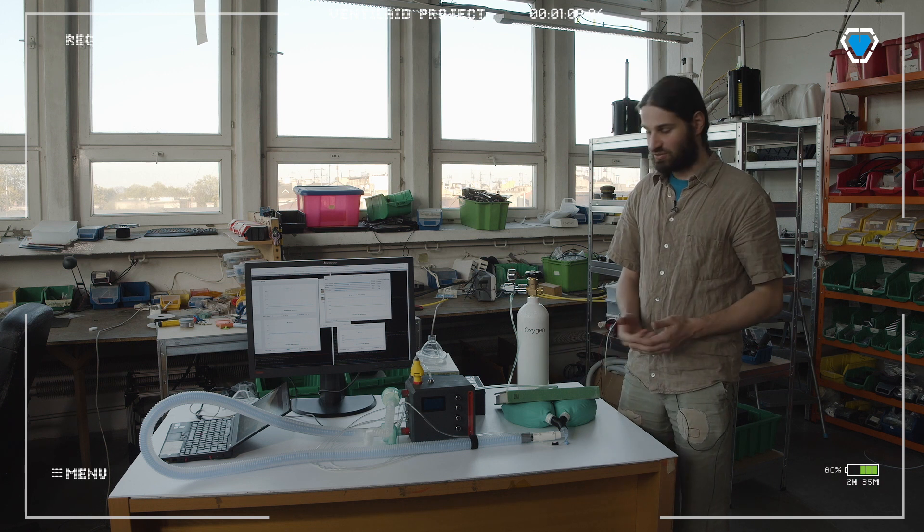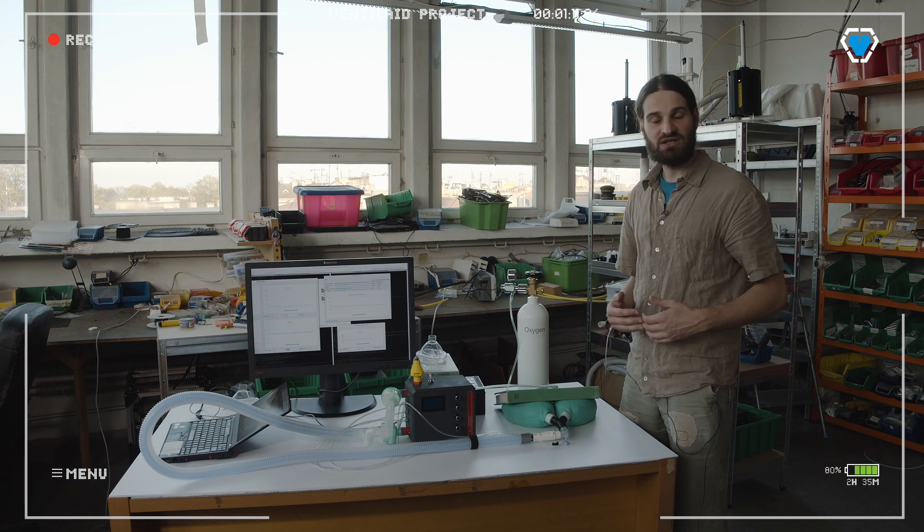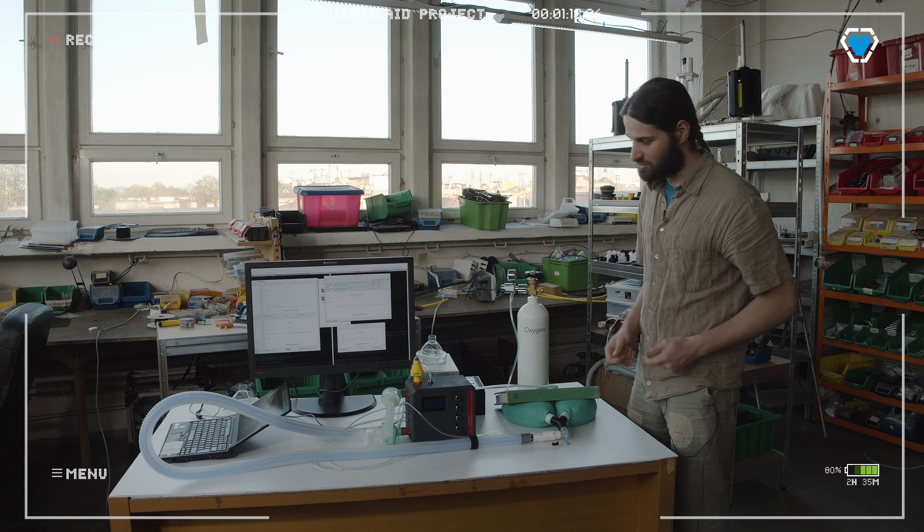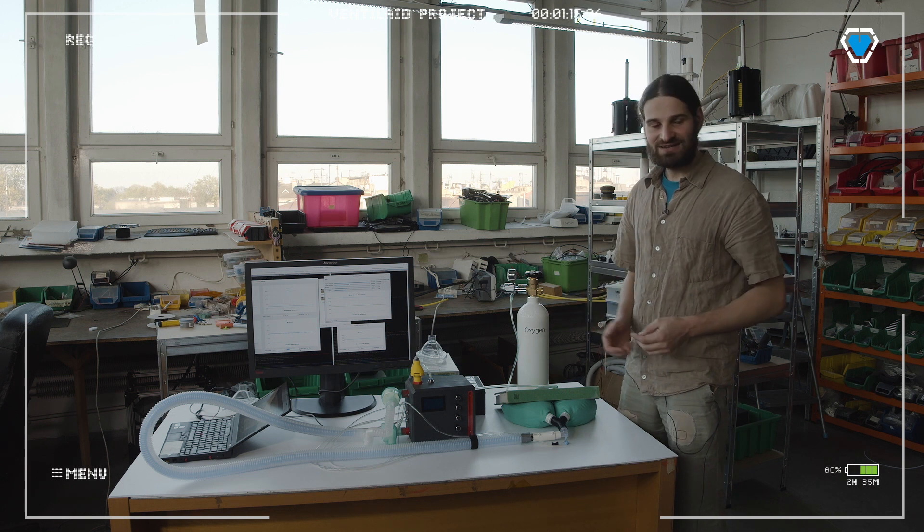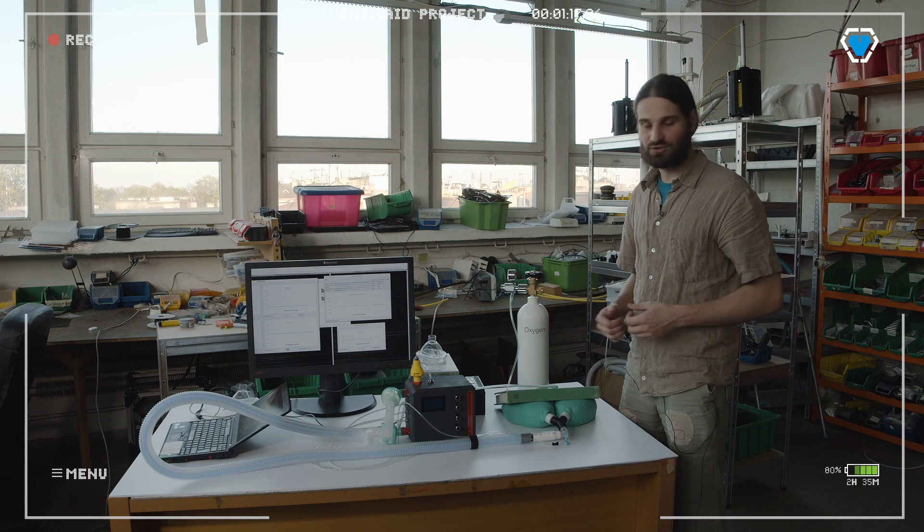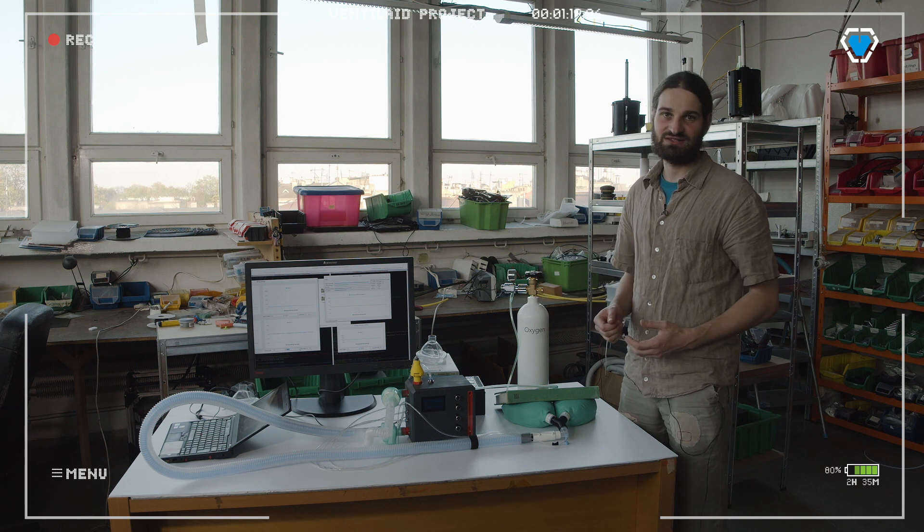Then that's about it. The only remaining thing is that you might want to see what's happening with your patient. Surprisingly, putting some decent screen on the device would increase the price twice.